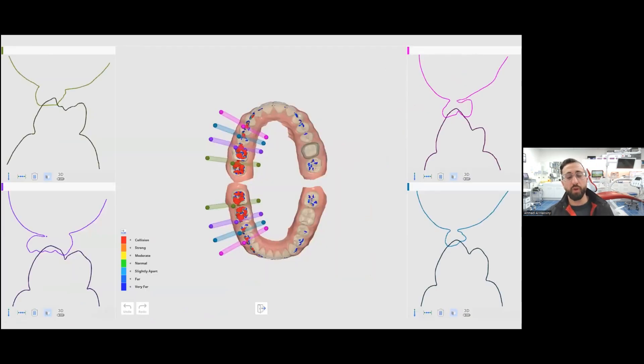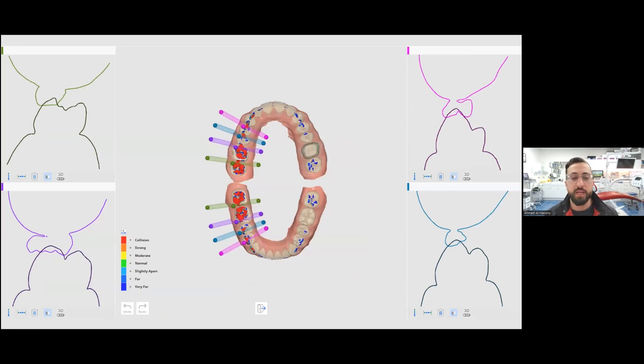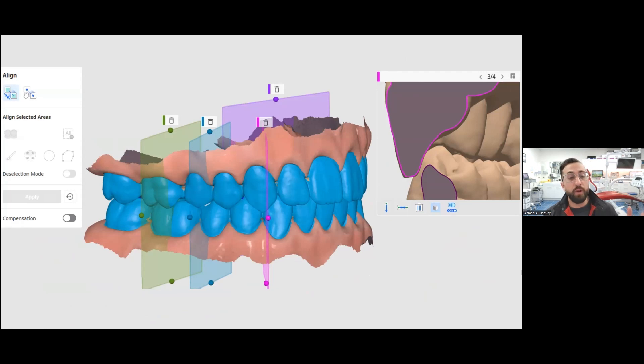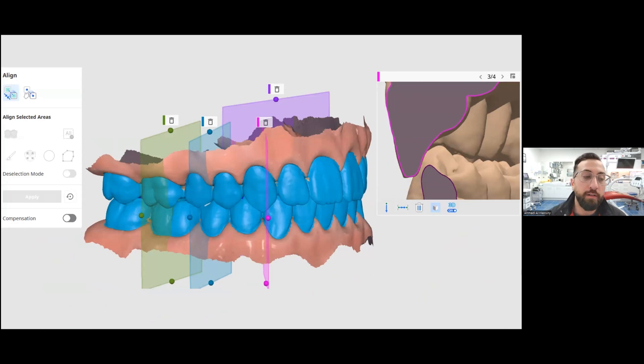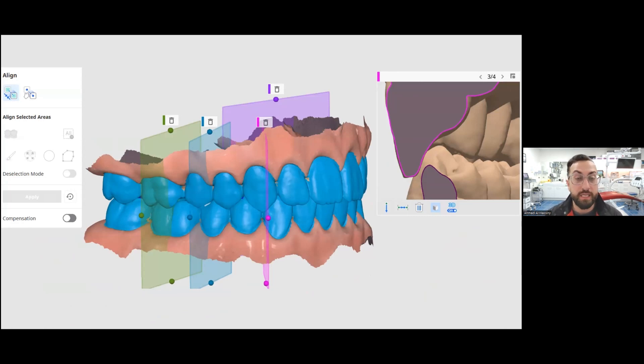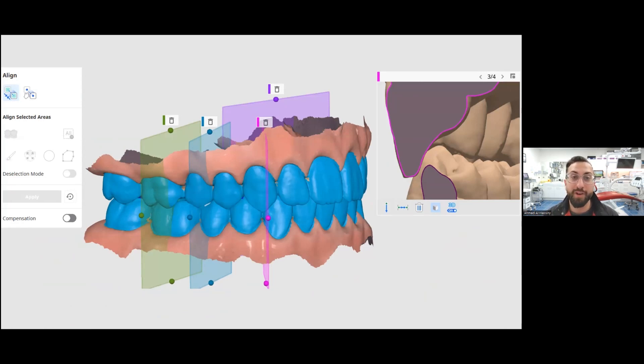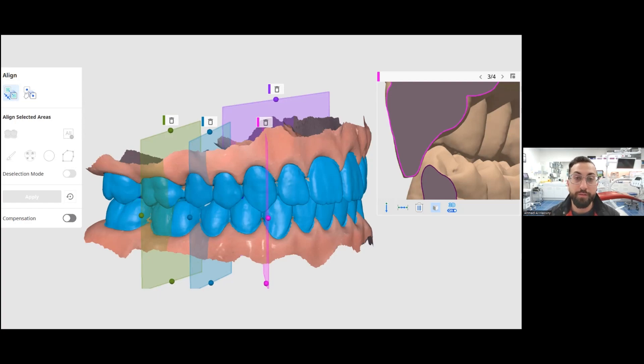It also gives you some other cool views. And more importantly, an opportunity to fix this. You can realign the bite. Now, if you're not comfortable doing something like this, I would just recommend you send it to your lab and inform them, because the lab, I promise you, is more confident and experienced with fixing these issues, because I'm sure they face it every single day.